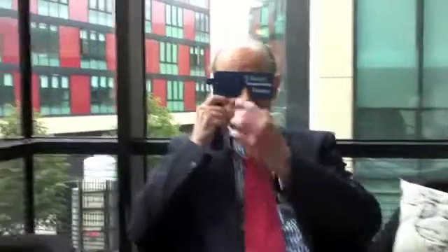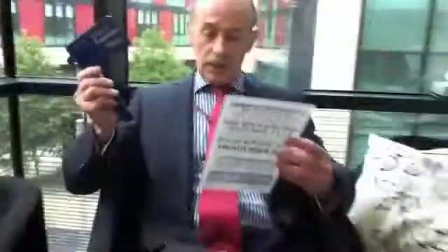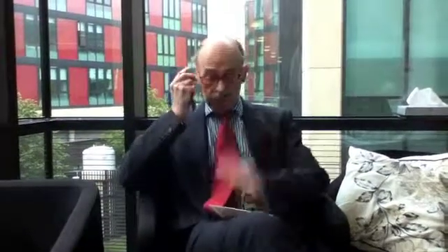Pinhole vision is very simple. It basically cuts out all rays except the rays going through the middle of the pupil. I've got fantastic distance vision. If I put these pinholes in front of my eye, my eye sees fine for distance. I'm somewhere in my 50s, and when I look at small print it appears to be a little bit of a blur. Without the pinhole, that's not clear — but with the pinhole, I can see it perfectly.